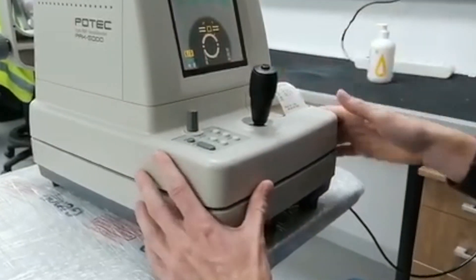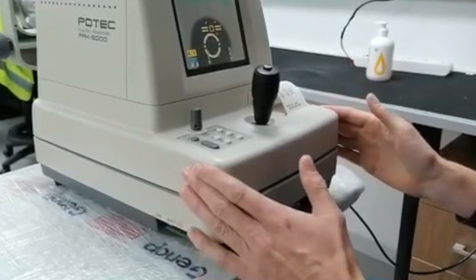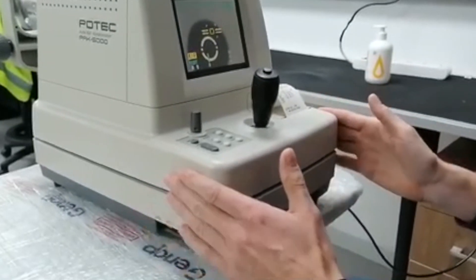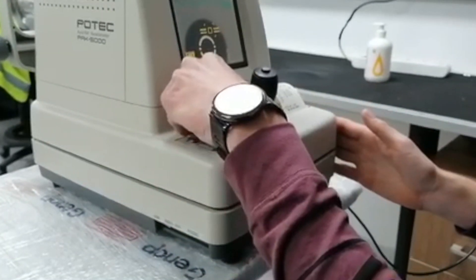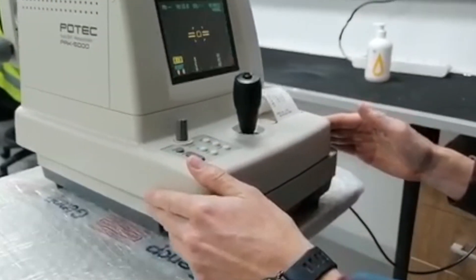Hi guys, I'm going to show you two things here quickly. This little lock here is for locking it when it's on the table. If the instrument's not moving up and down or if it's not in use, it is advised to use that. Just unscrew that and you'll see you can move it left and right.